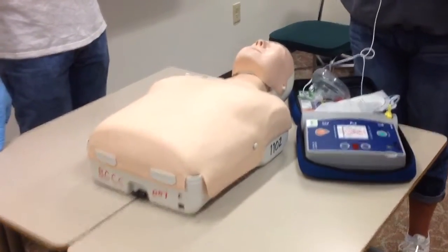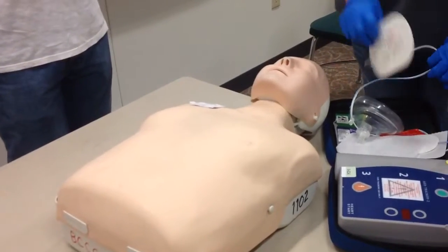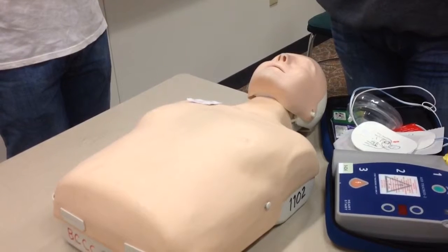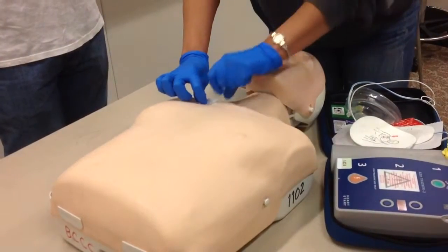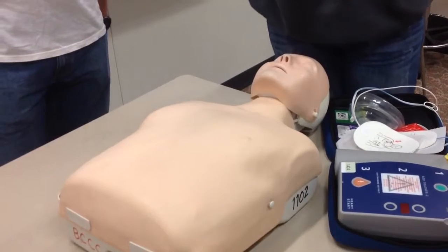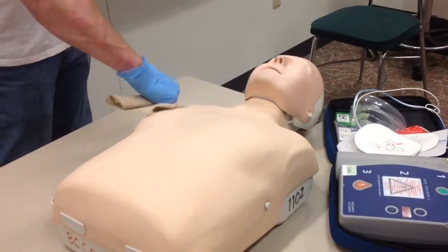to the heart. And lastly, for transdermal medication patches, you should not place the AED pads directly on top of a medication patch. You must also make sure that you are wearing gloves when removing this patch, and it won't delay shock delivery, so remove the patch and wipe the area clean before attaching the AED pad.